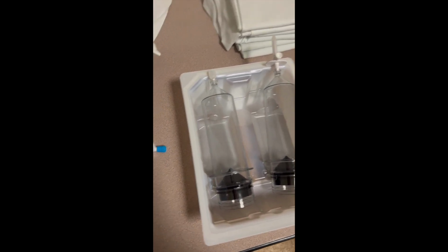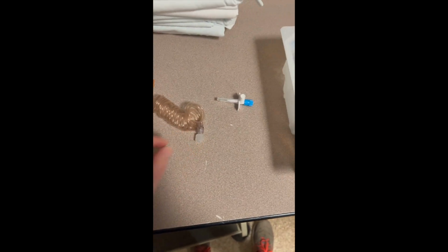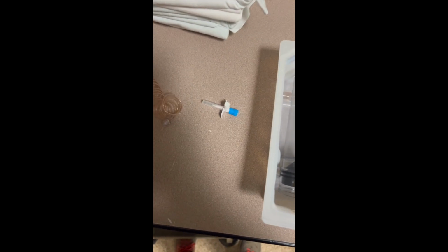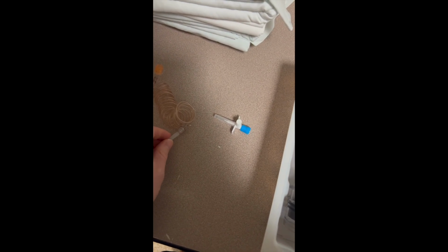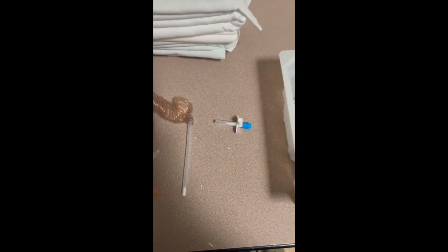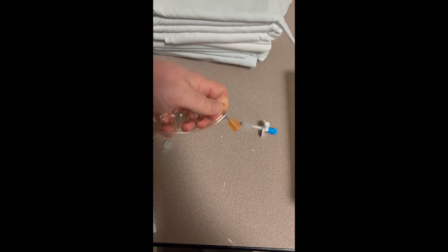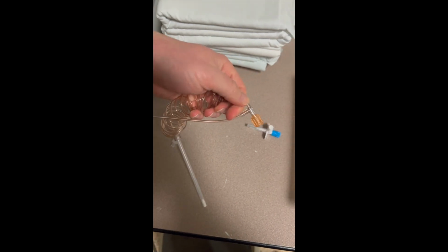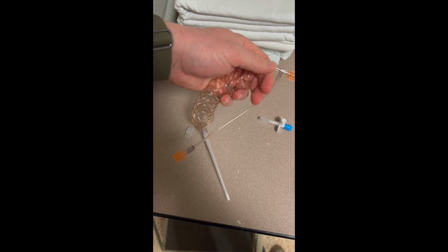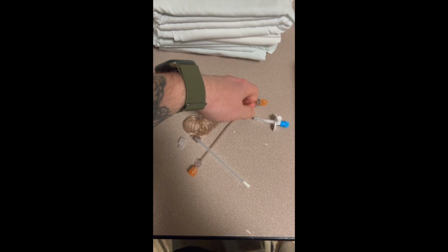And then after it's already pumped up all the saline, and you have your little cap here, all you have to do is pop off this, go ahead and stick your tubing on the end here, and then once it's in there, you're going to have 2 sides. You got your short side and then your long side. The short side's going to screw onto the contrast. This long side's going to be screwed onto your saline part.